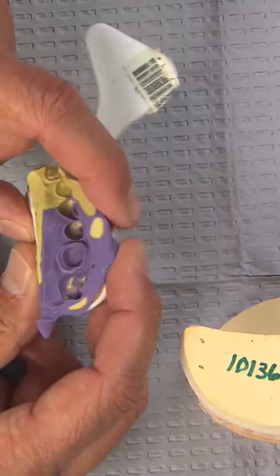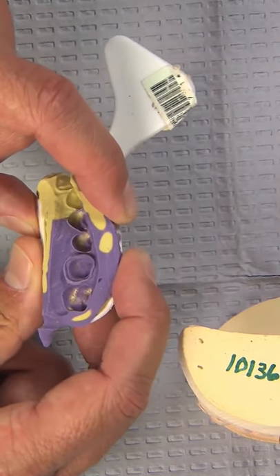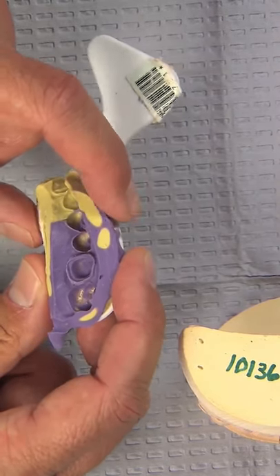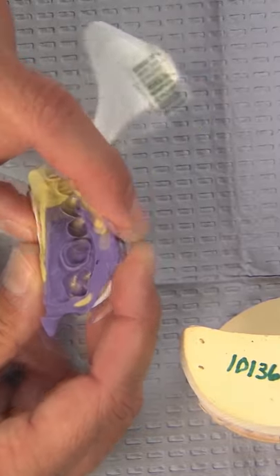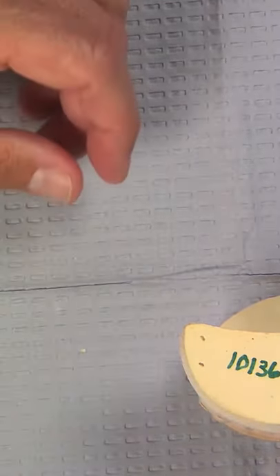Let's take a look at the impression. First thing we notice, we've got a plastic impression tray. I'm kind of a fan of metal impression trays, but if you use a stiff enough material you'll be okay, and it looks like it was a clean impression. In fact, if we hold it up to the light, we can see that all the unprepared teeth were just about in contact.